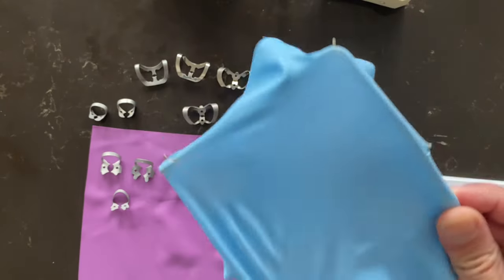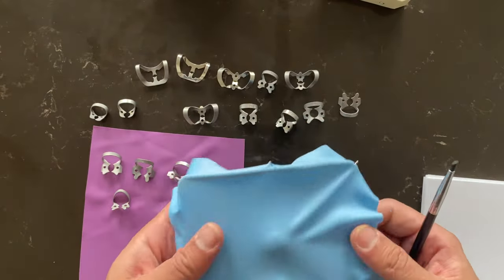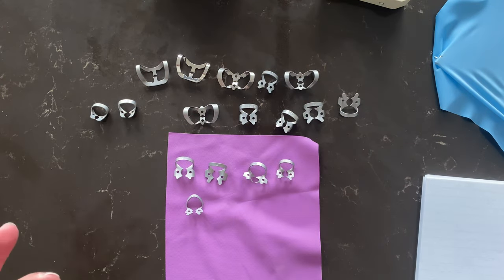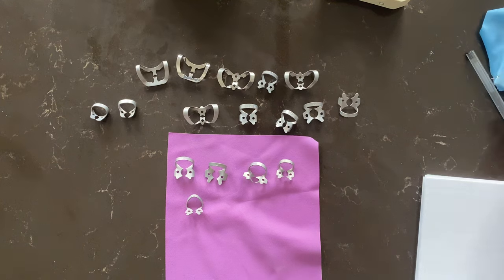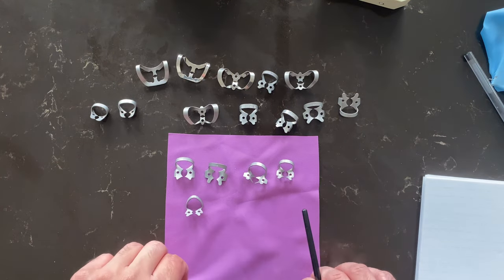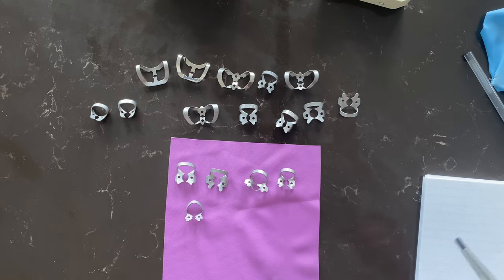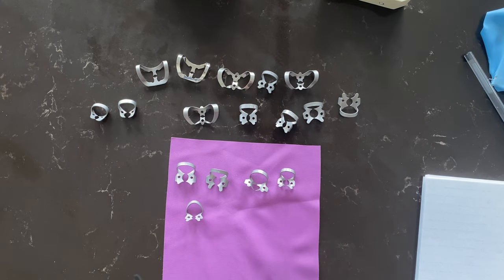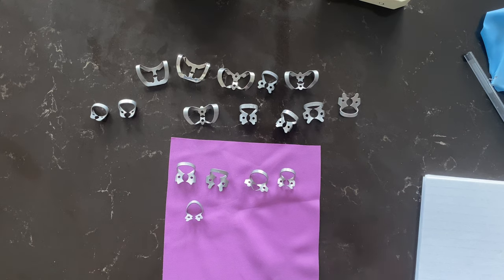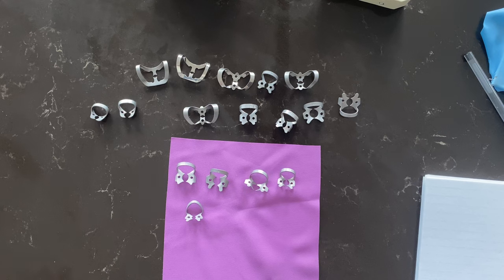Don't worry about these other fancy looking rubber dam sheets — we just focus on this purple one for the exam. The name of the sheet and all that I'll post for you so you don't have to worry about it. We need to focus on five clamps, focus on the basics, and it just works every single time. Less stress.